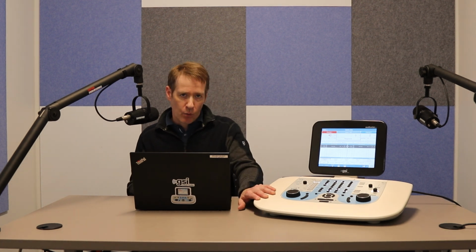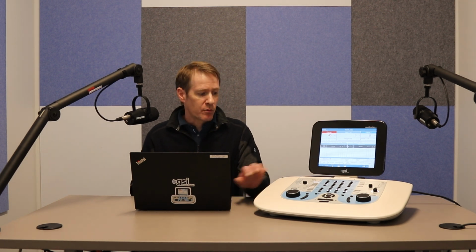If you have it set to time expire correct or incorrect, you can override the automatic scoring by just waiting for them either to make their error, or if they say it correctly, you would just override that before it gets to the next word with either the correct or the incorrect button, and then that will represent your score correctly at the end of the test.